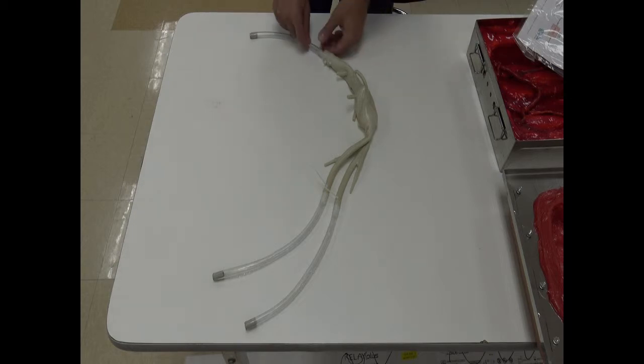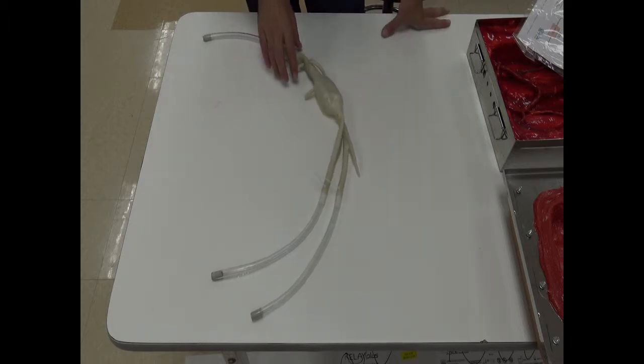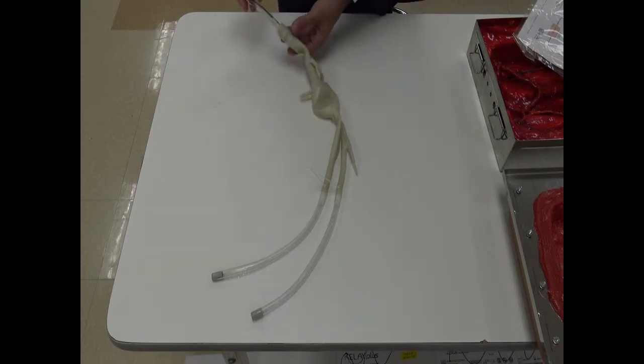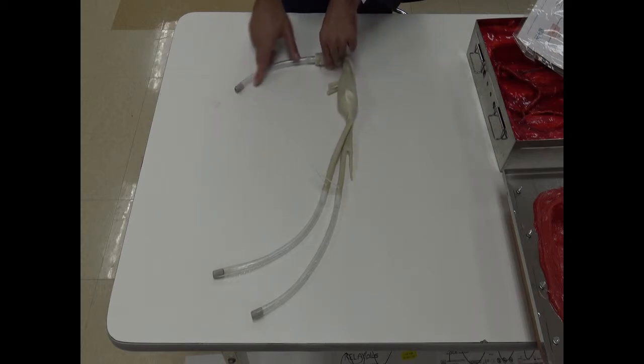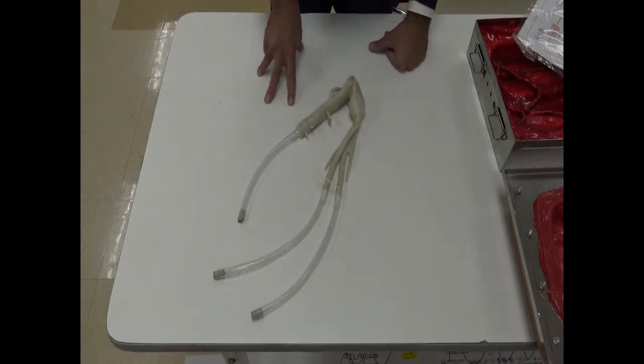All right, just another tip for executing on the open surgical graft simulators. What we recommend is that while you have one group working on an anatomy, if you have more than one group that needs to go through, you already start preparing your next anatomy. The way you do it is that we are providing you with a small set of 3 tubes.